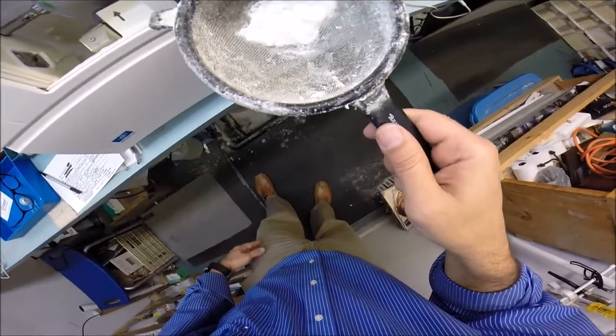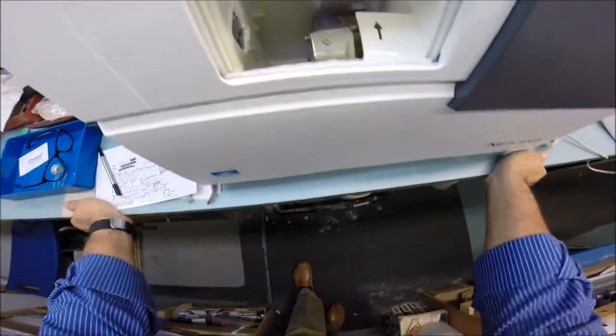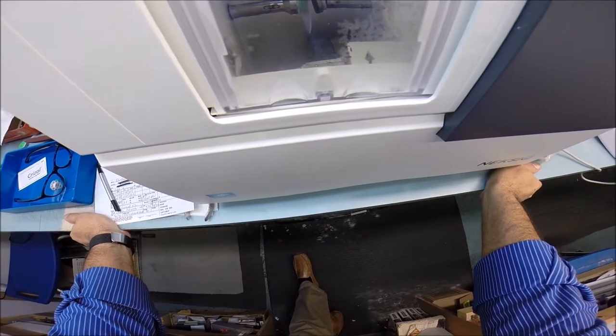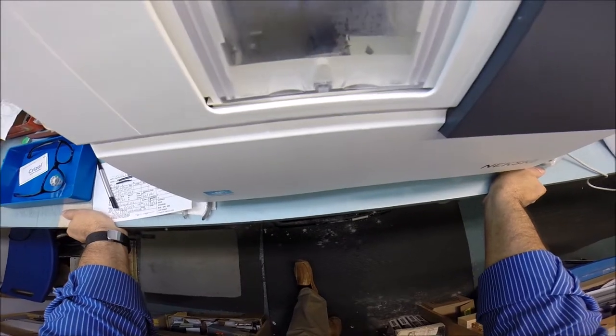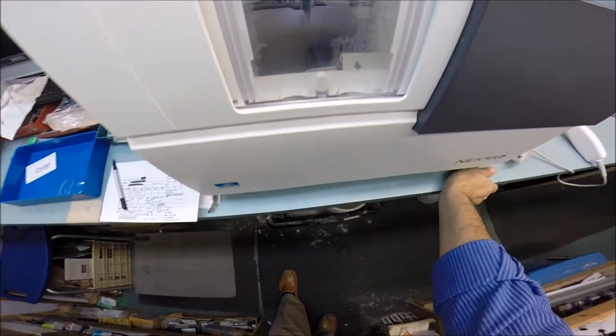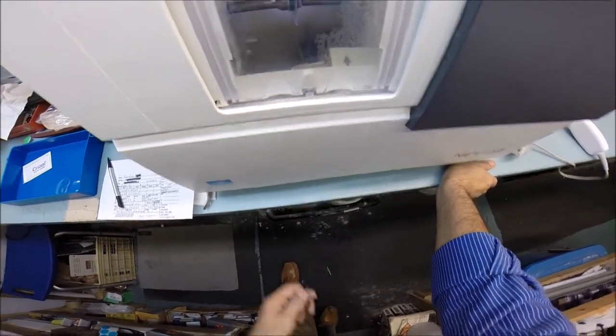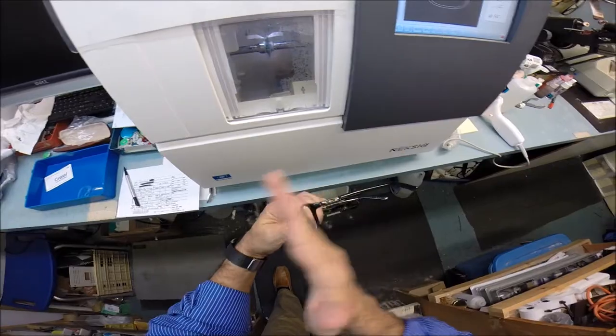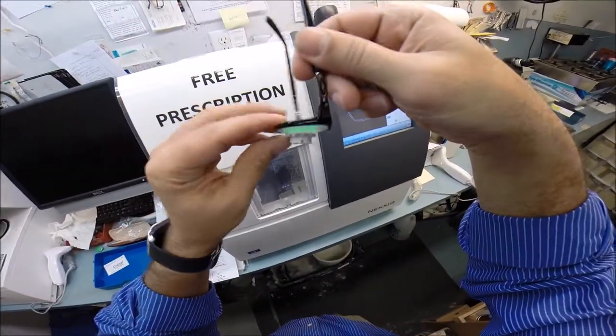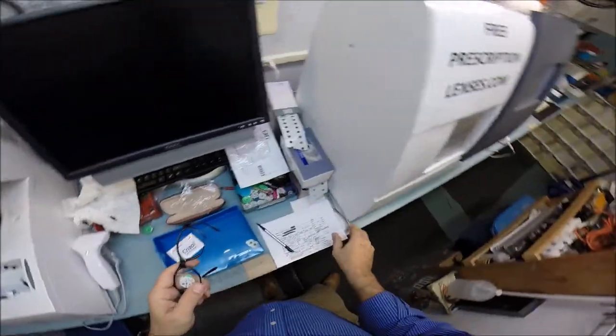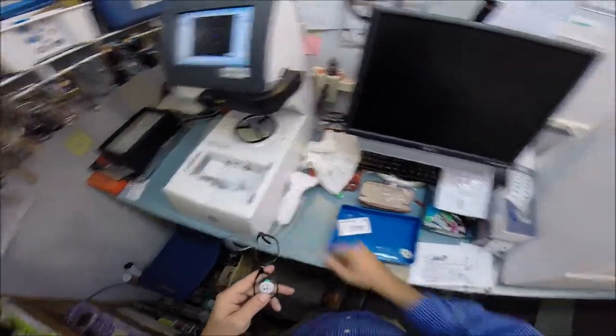I'm going to hit the L button, which in Latin stands for not right, just like me. I'm going to hit that green button once I attach this magnet into the chuck which holds the lens in place. If you want to see the optical sawdust that was left over from cutting your lens, that is it, and you will have twice as much of that when I am done. Let me hit the green arrow. Just like before, the door closes, the clamp comes down to shut. It traces the shape of the left side of the frame this time to make sure it's large enough to fit, and again measuring the thickness of the lens at every point going around to know where to place it into the frame so you have no edge thickness protruding.